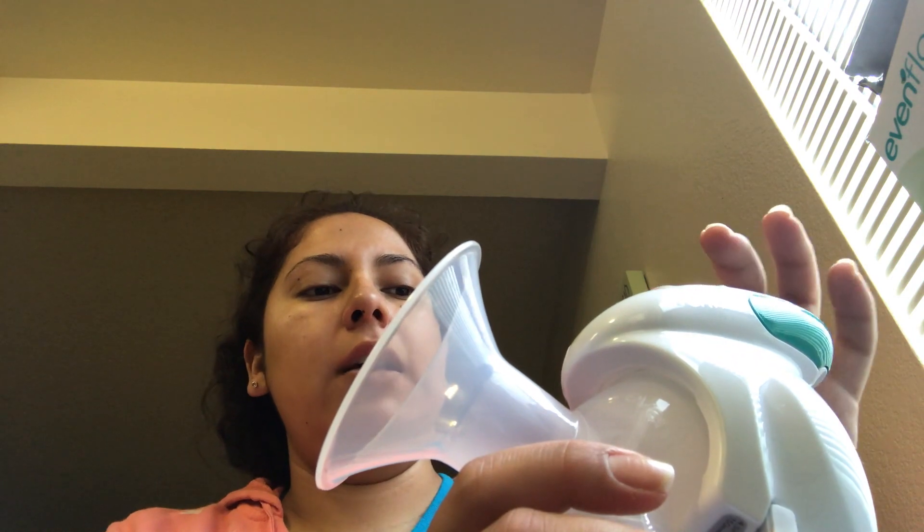So I really like this pump, I'm not going to lie. I was super surprised by it. I used the other one that they used to have, which kind of looks similar to this one, but not really — and I liked it a lot. This one I really love. It does not pull on you like other breast pumps do. I feel comfortable. That's the noise it makes when you are pumping. So I am currently breastfeeding and pumping at the same time. I love how this pump feels — it doesn't feel stiff like other pumps do. This one feels comfortable on your breast. And the settings are good. I like how it goes from off all the way to the fastest one.